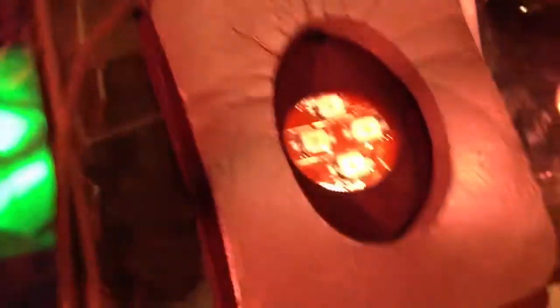You can use it on the arm just similarly, or you can put it down below the site and then see the veins above it. How does this interface with the night vision goggle? If you lay your hand across this and look at it with a night vision goggle, that's what it looks like.